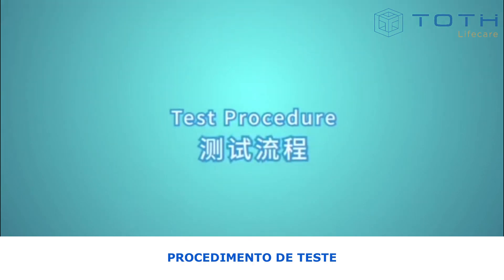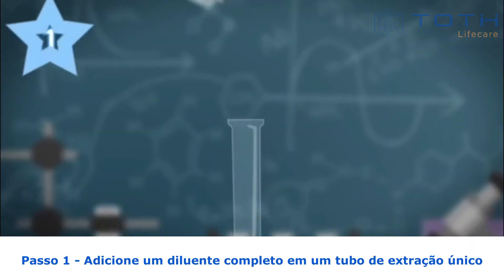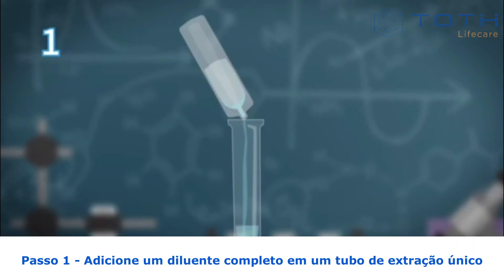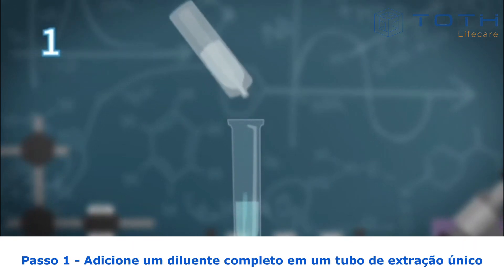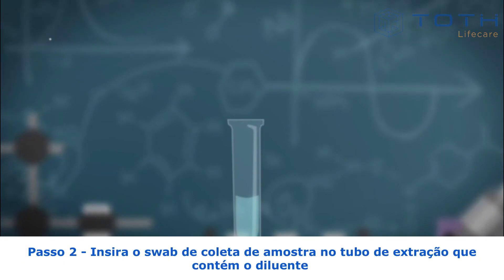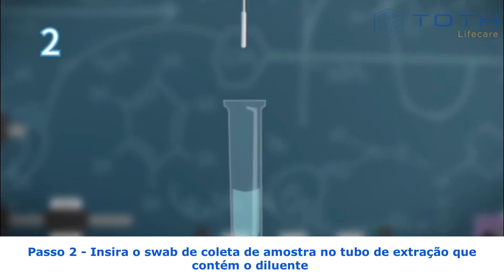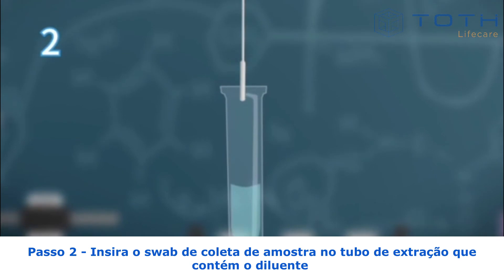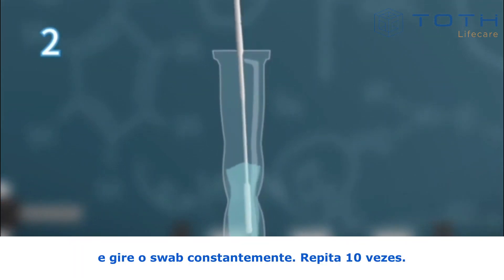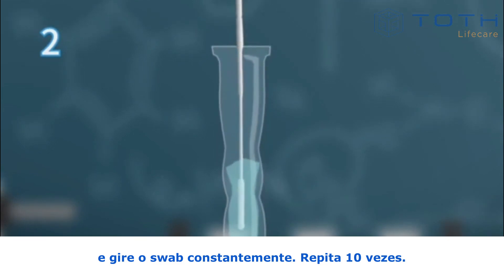Test procedure. Step 1: Add all of one single buffer — 380 microliters — into a single-use extraction tube. Step 2: Insert the specimen collection swab into the extraction tube containing 380 microliters of the buffer, and rotate the swab constantly. Repeat 10 times.